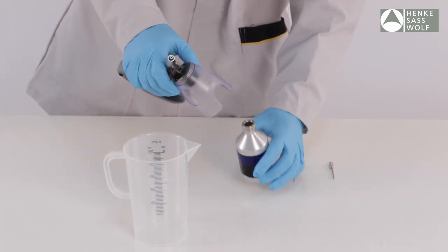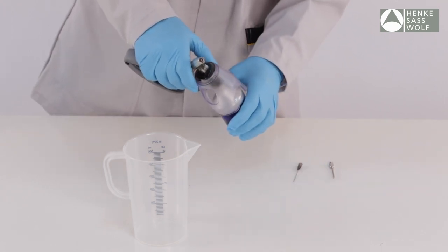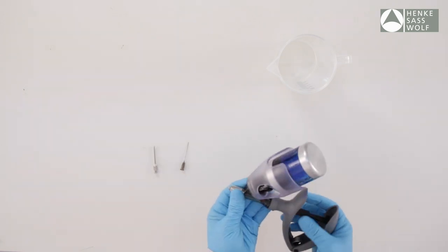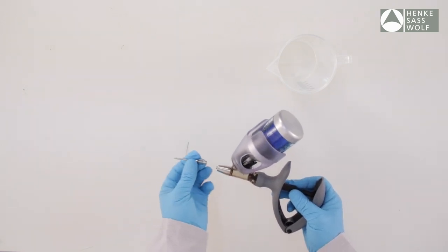Insert the bottle into the basket. Use the viewing window of the basket to line up the bottle in the center of the rubber cap. Pierce the spike into the bung.